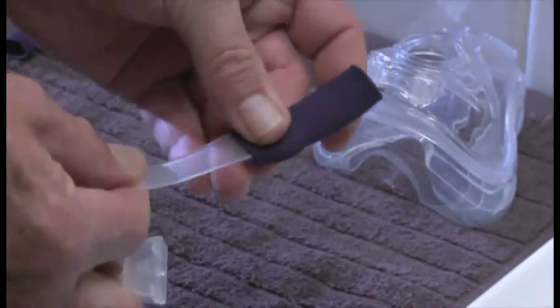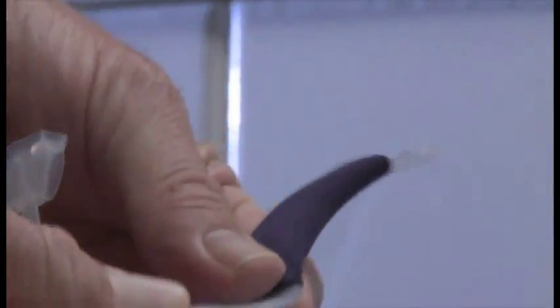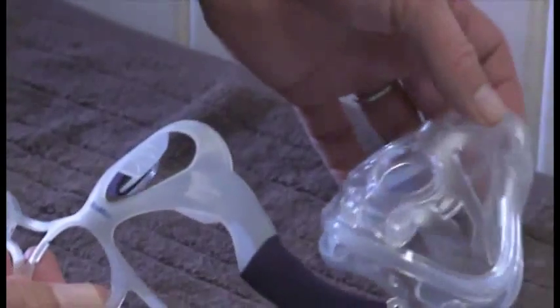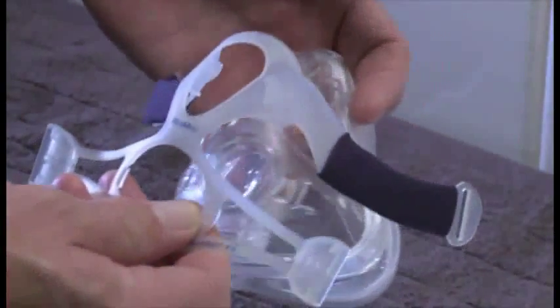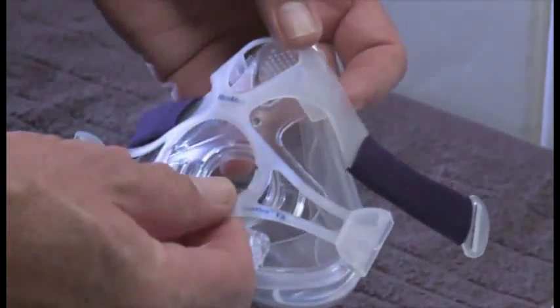Replace the soft sleeves onto the spring frame. Then, starting at the top, gently push and click it onto the frame.